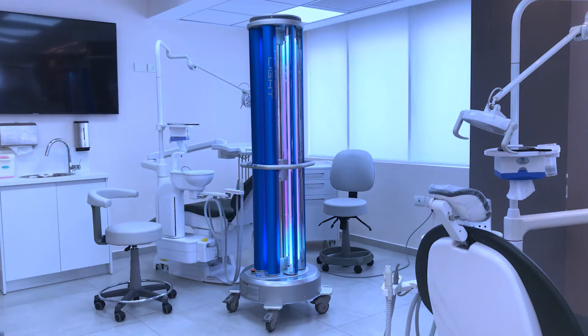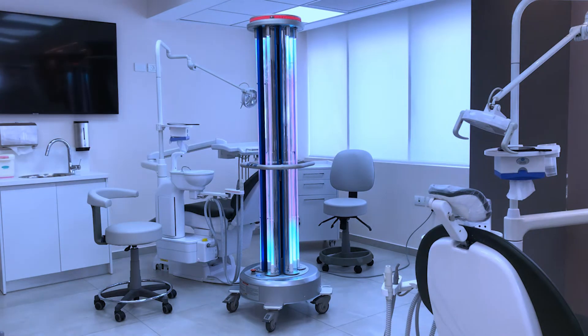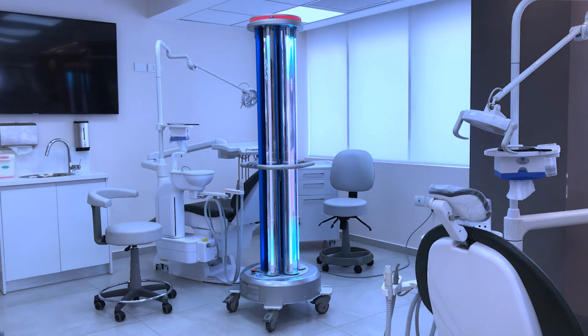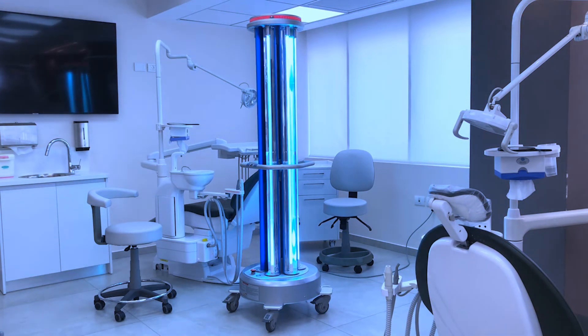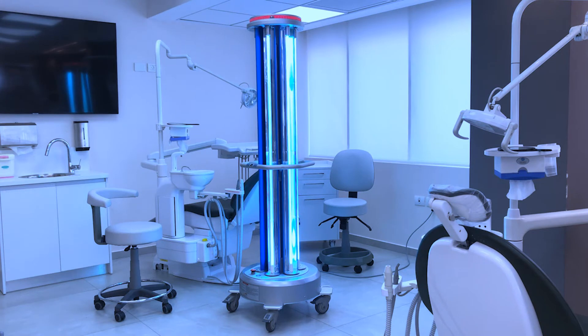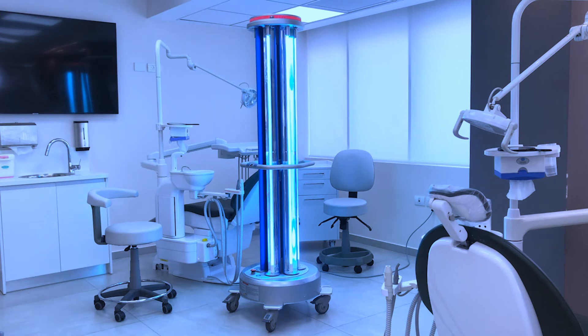The device's shields also serve as reflectors, rotating in place to increase exposure to the ultraviolet radiation. The 254 nanometer UV radiation, achieved through six powerful amalgam bulbs, causes damage to the nucleic acids of the various microorganisms, whether airborne or on the various surfaces. The amalgam bulbs are highly efficient, long lasting, and help us avoid the risk of exposing the operator to harmful residues of disinfectants.